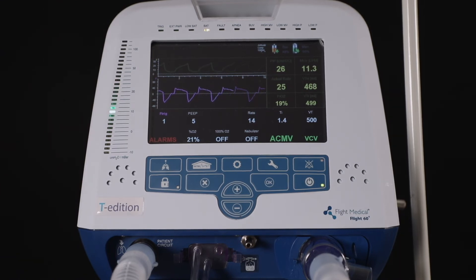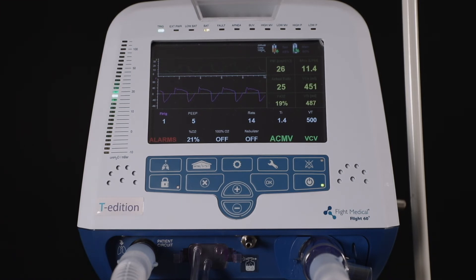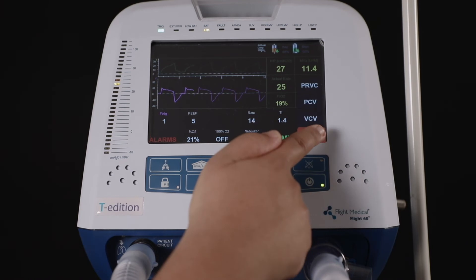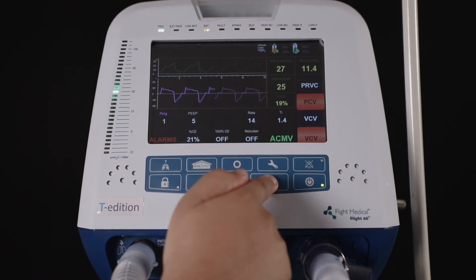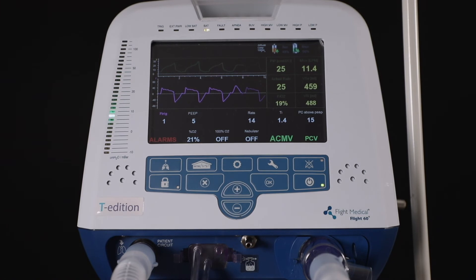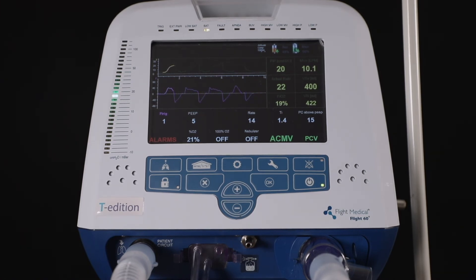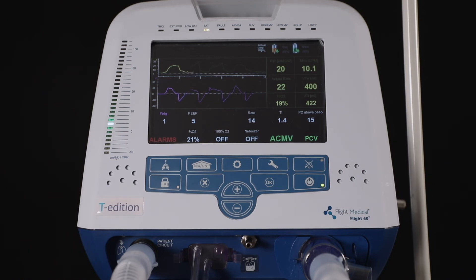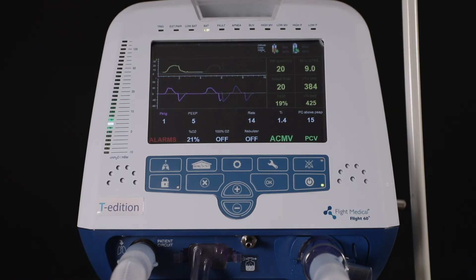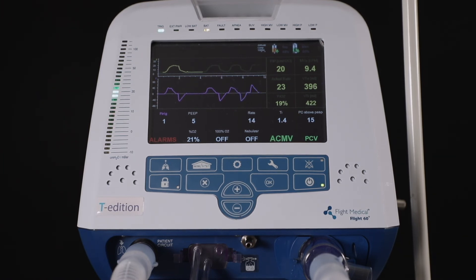ACMV mode in pressure control ventilation is generally used for low compliance and high resistance patients. Patients can trigger mandatory breaths in addition to, or in place of, time-activated mandatory breaths if the effort they generate causes airway pressure to meet the p-trig or f-trig setting. Each such patient effort results in a mandatory breath.